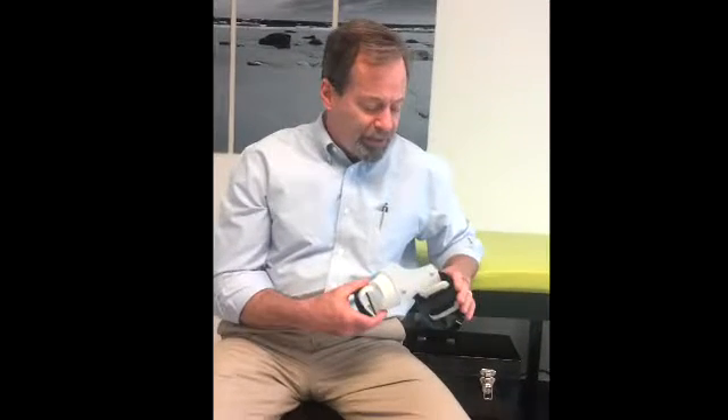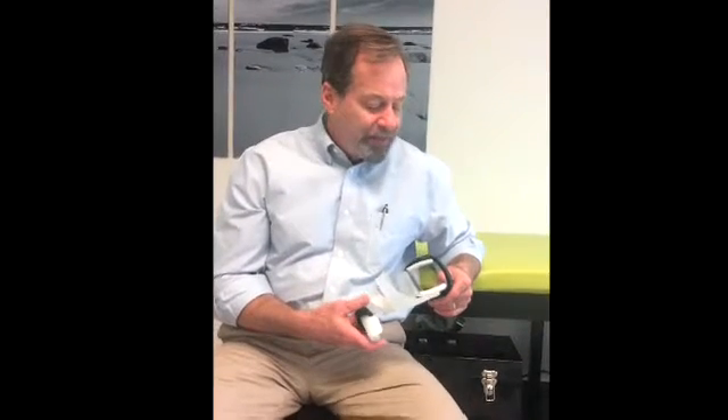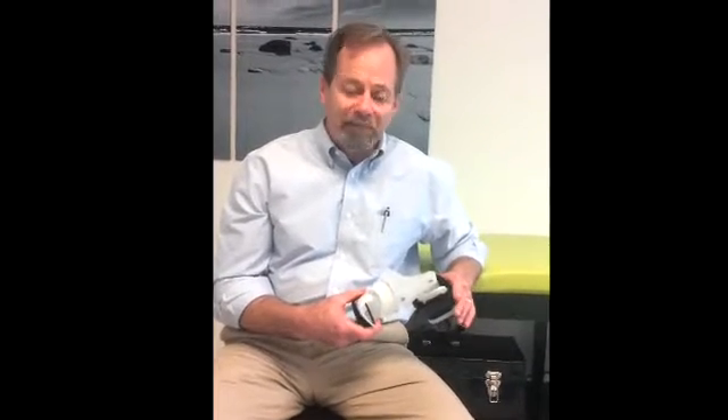My name is Gerald Cunningham. I'm a prosthetist orthotist working in Wells, Maine. About 12 years ago I developed a brace for treating clubfoot. We've had a lot of interest in the brace lately and there's been a lot of questions about it, so we wanted to put together a quick introductory video that talks about the design of the brace and the principles behind it. In a bit we're going to be getting together with one of our patients to see the brace on the baby, but this is first just a look at the brace itself.